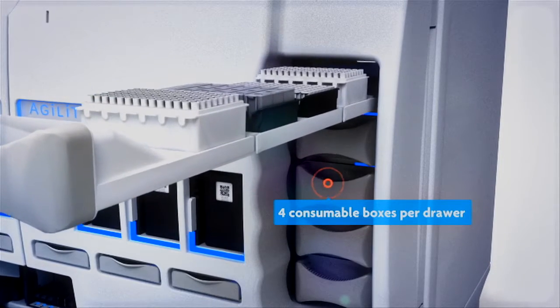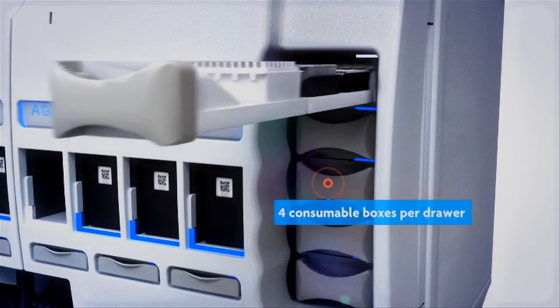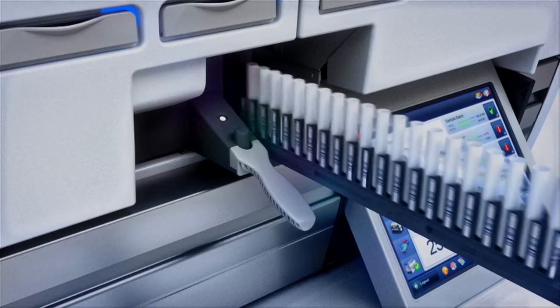Since the system reads the barcodes only after the consumables have been loaded, it's not possible to make a mistake.